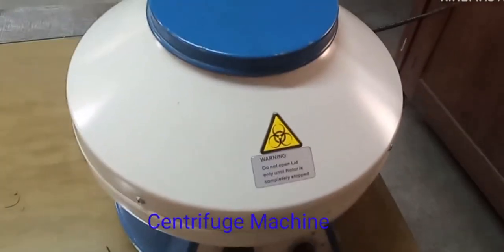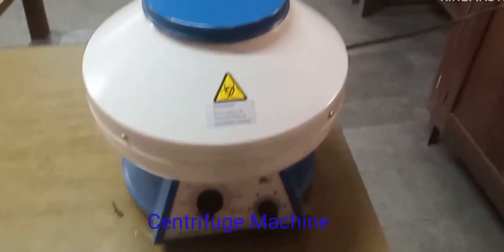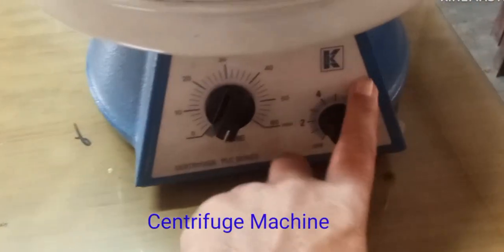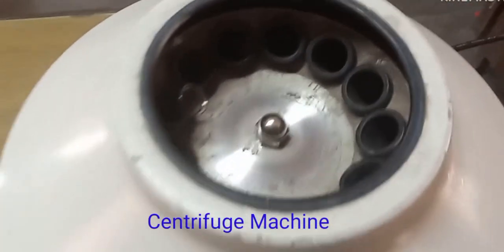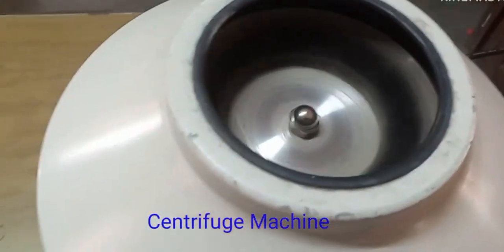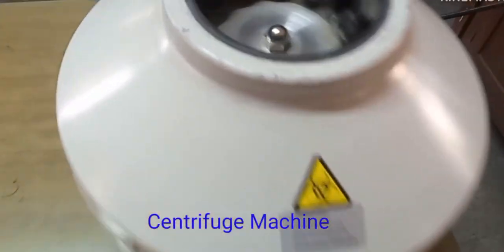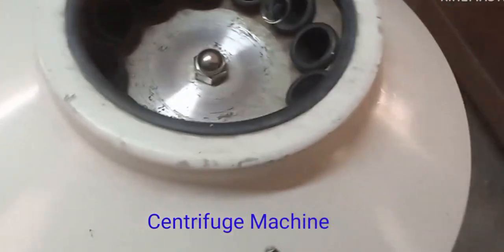Now you are watching a centrifuge machine, which is most essential for a practical lab or diagnostic center. It is used for separating cellular elements from blood to provide cell-free plasma or serum for analysis. It's also used for concentrating cellular elements of biological fluids for microscopic examination.